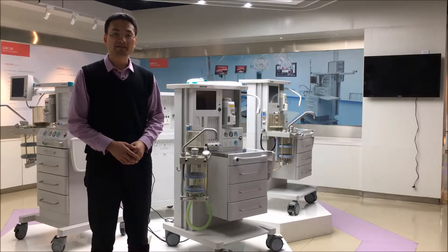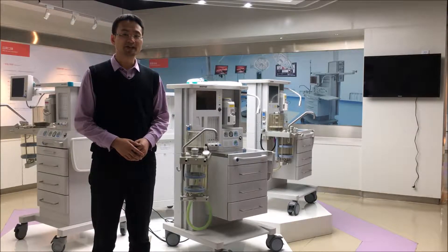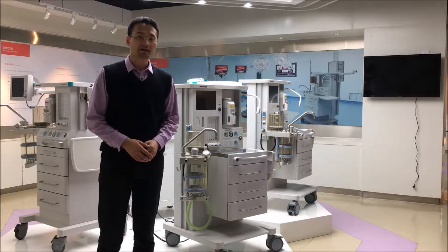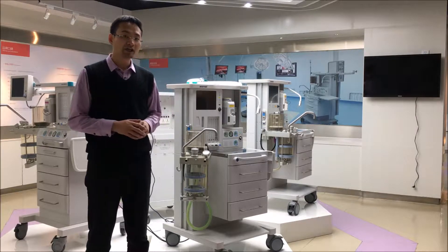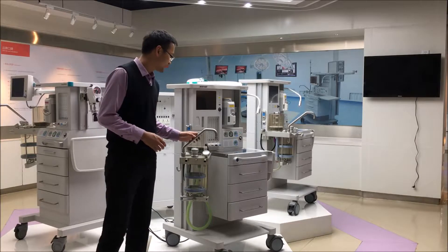Hello, my name is Qi, a biomedical engineer from China. Now I want to introduce the breathing system.